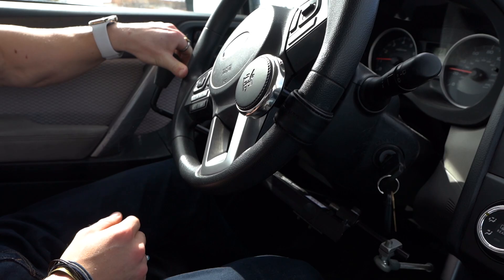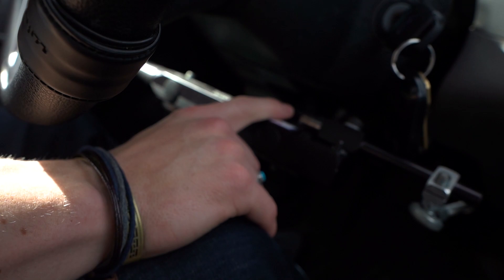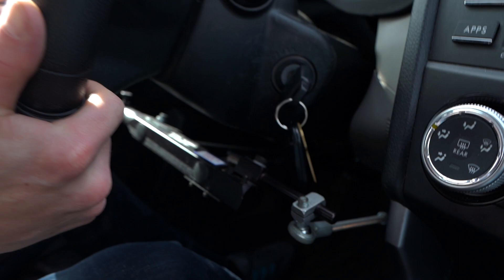You can see how I'm doing this turn just with my thumb — completely one-handed. When I pull back, you can see this little black thing here lifts up and that pushes this, which then pushes this down. That's for the accelerator. It's a very cool, lever-type system.